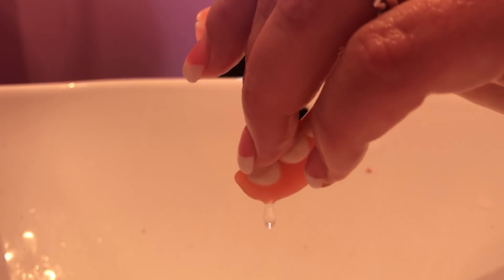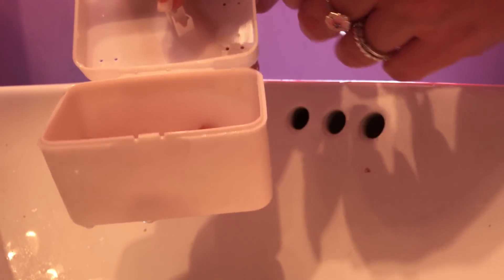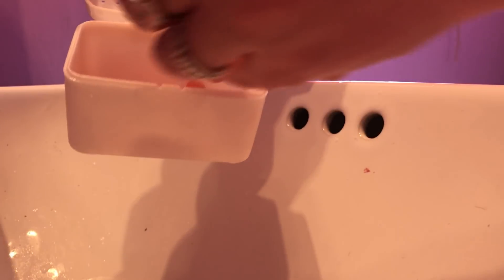Now we're done brushing. I really should have covered my sink with a towel or washcloth because you can drop a denture into the sink and it can crack or break — some people lose teeth that way. I use warm water, not scalding hot, because I heard hot water can mess up your dentures. I'm putting the bottom in the denture bath first, then the top on top.